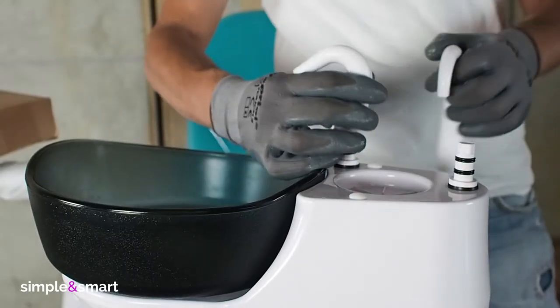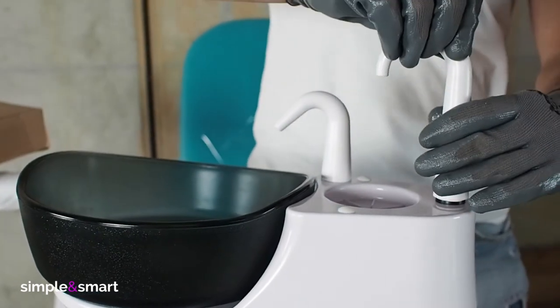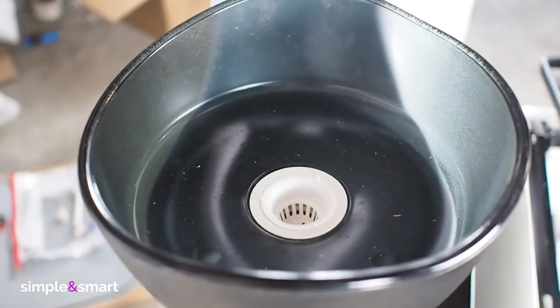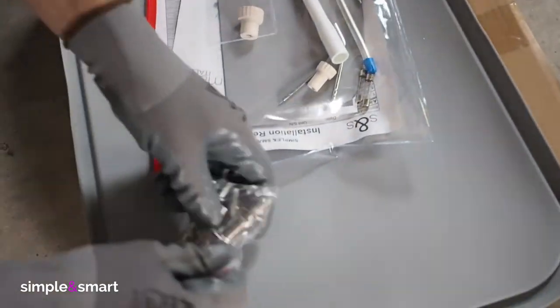Small tap is for the basin, big tap is for the glass. Get back to the plastic bag and bring the three biggest screws in your hand.